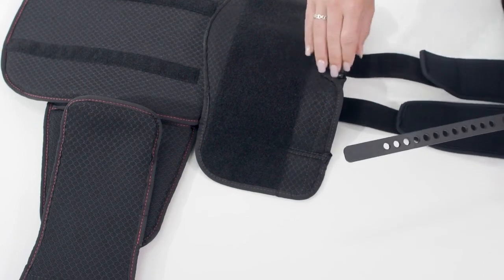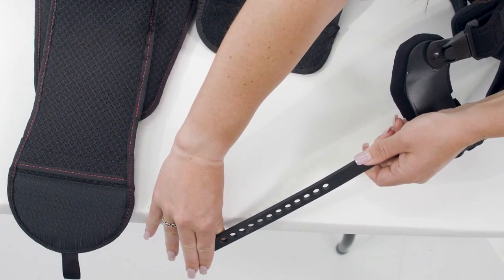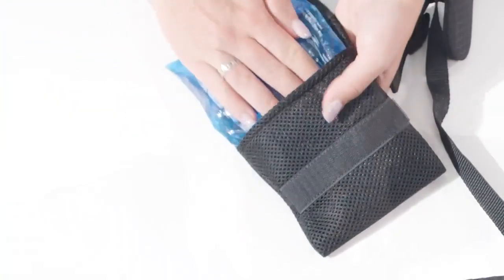The stock external Y-bar is set at 15 degrees. It may be bent as needed by using a stable edge of a table — using both hands, bend the bar in a slow and controlled fashion to adjust the desired degree of offset. If the patient will use a hot/cold pack with the TLSO, follow the instructions in the pack.